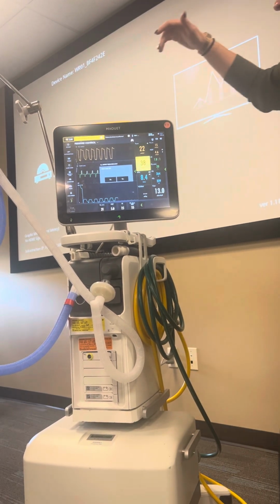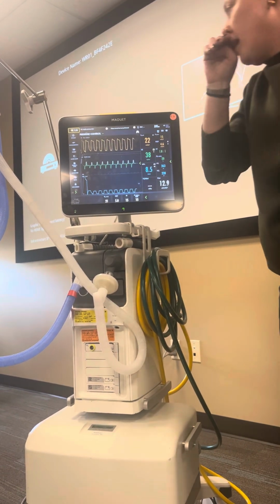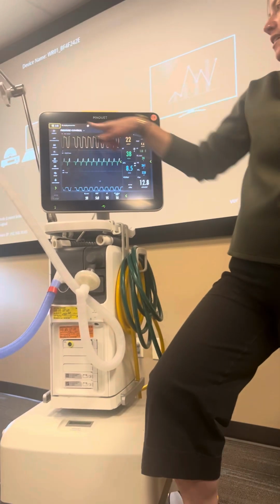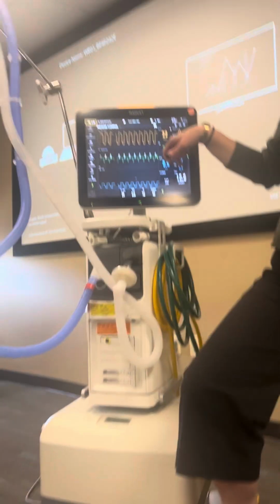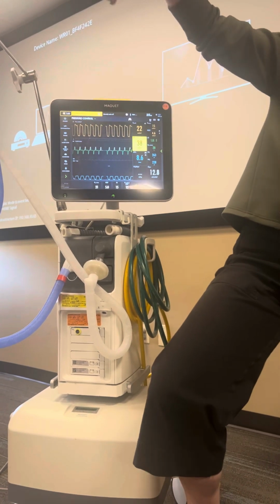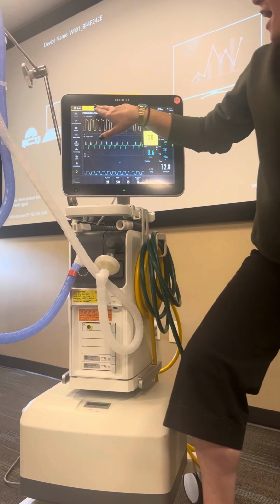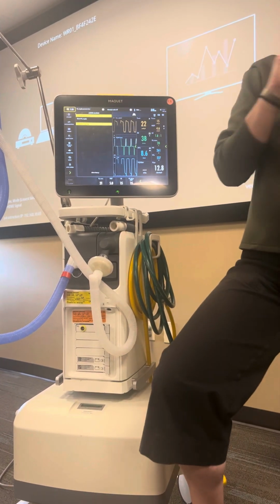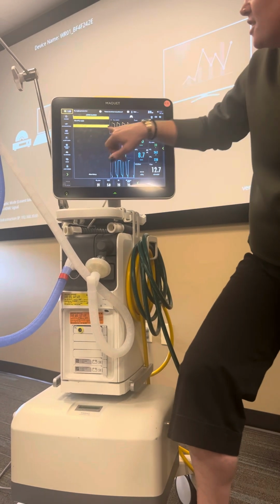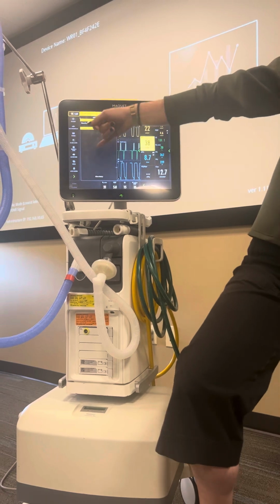Okay. So this is perfect because it's alarming at us. I'm going to turn the audio off. You can see that I've got a high respiratory rate, and that's why it's yelling at me. It's because this bag's just flapping around. Lungs don't do that, so it thinks it's the respiratory rate. And that my O2 supply pressure is low, which we know because it's not plugged into oxygen. If I open this up, I can see it says O2 supply pressure low, check your O2 supply.